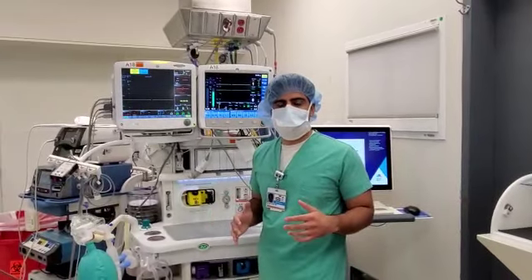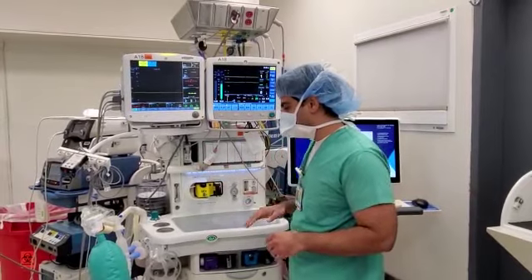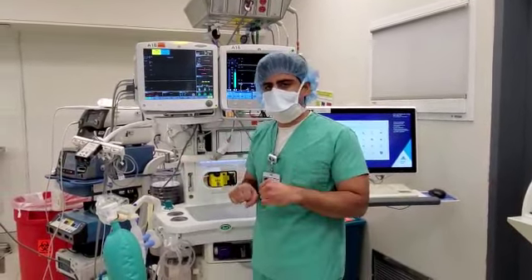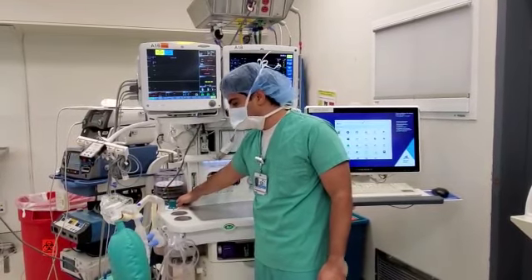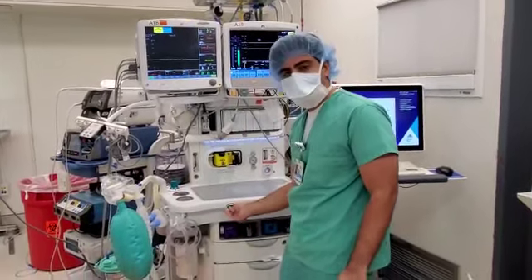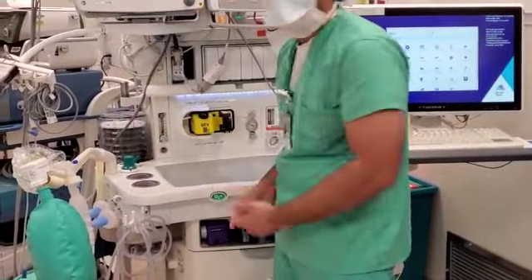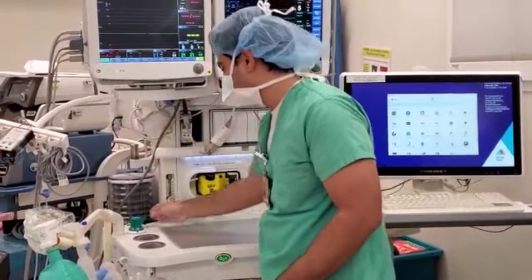Alright, so just to go over a few more things that I missed in the last video. When you disconnect a patient from the ventilator and then reconnect them, the bellows are going to drop because the pressure is lost. The best way to increase the bellows again when it is on the actual ventilator mode is to hold this O2 flush button. When you hold it, you'll see the bellows come back up to fill up to then drive the pressure again for the next breath.